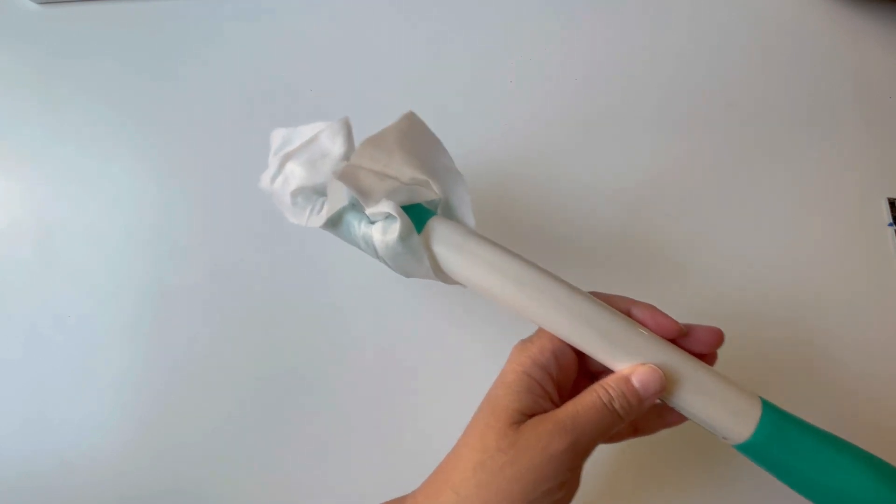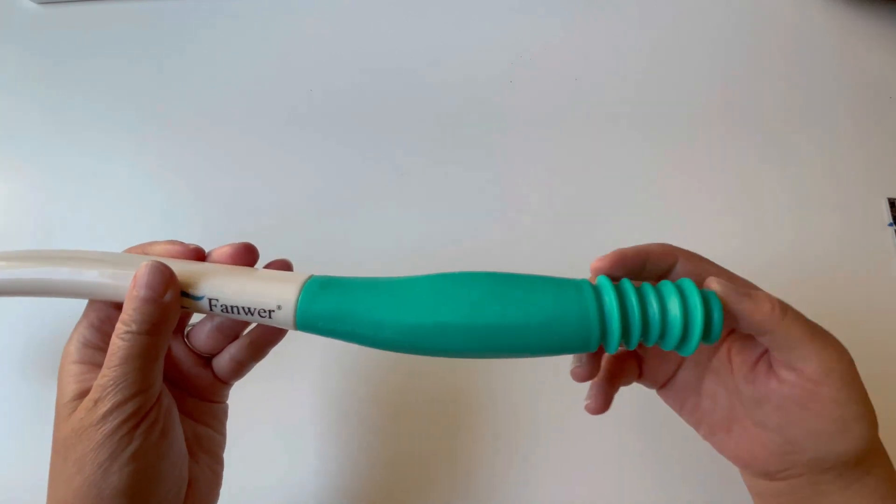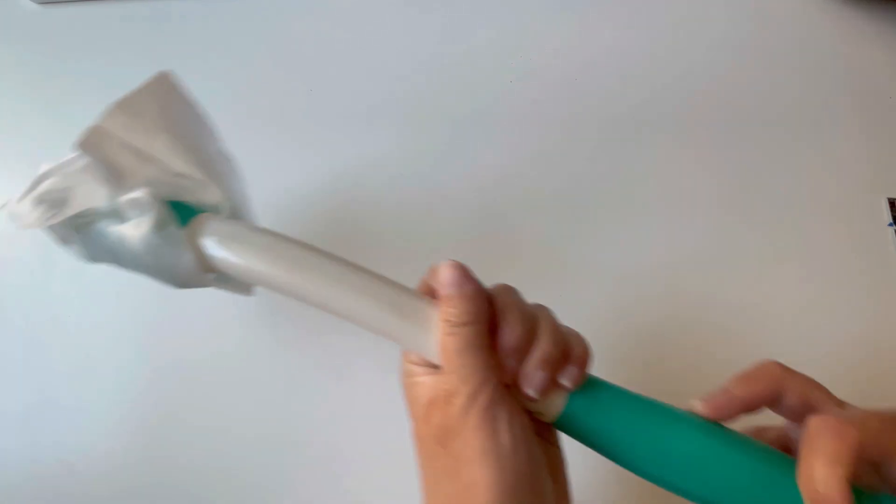The mechanism to release the toilet paper or wipes is pretty cool. You simply push the handle down and look, it releases it.